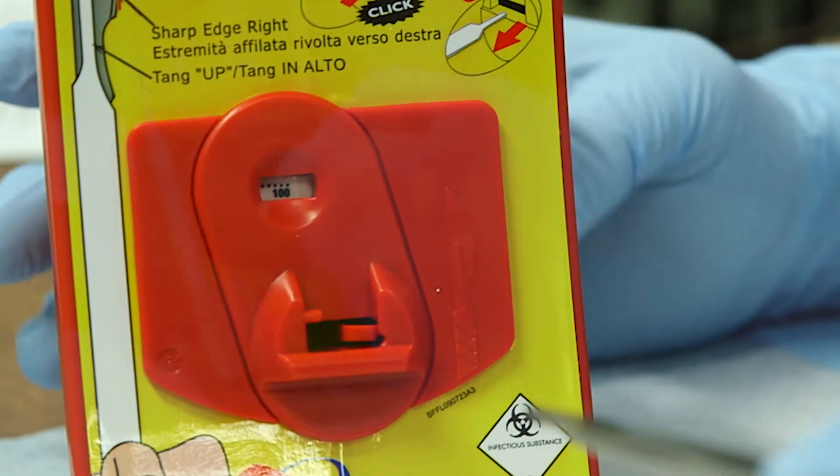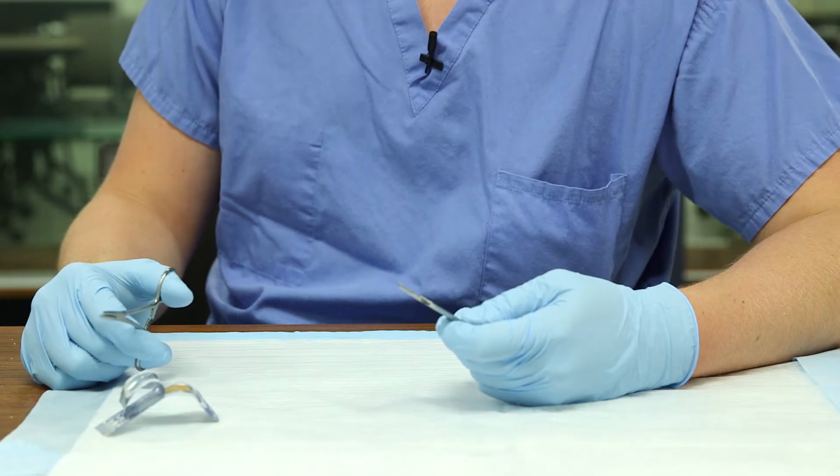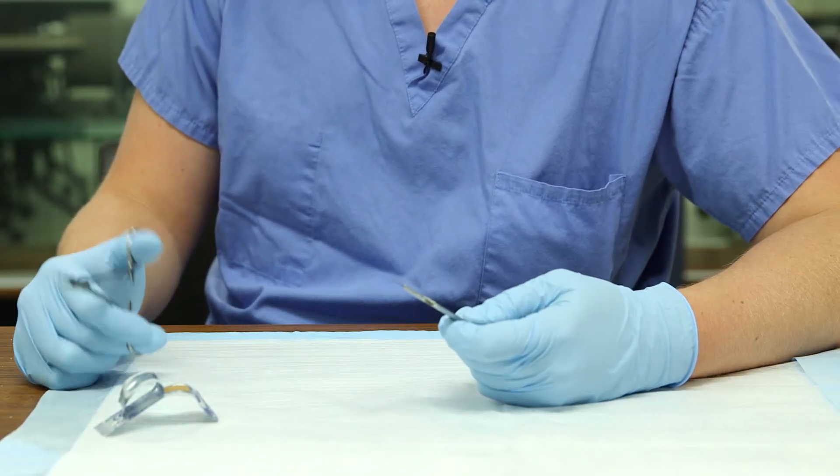If you are using a scalpel in an area that doesn't have a blade flask available, you will need to remove the blade manually. This is another point where we have seen injuries.